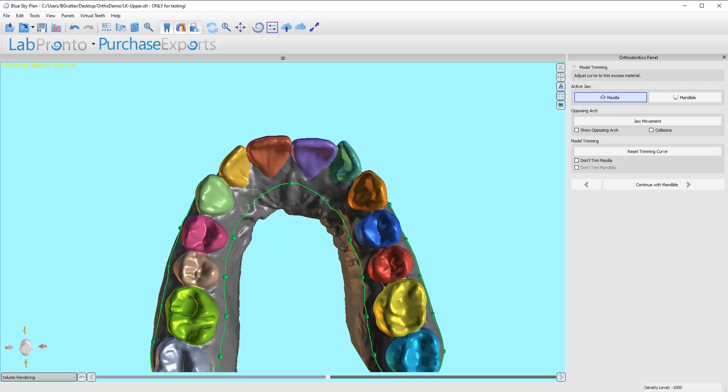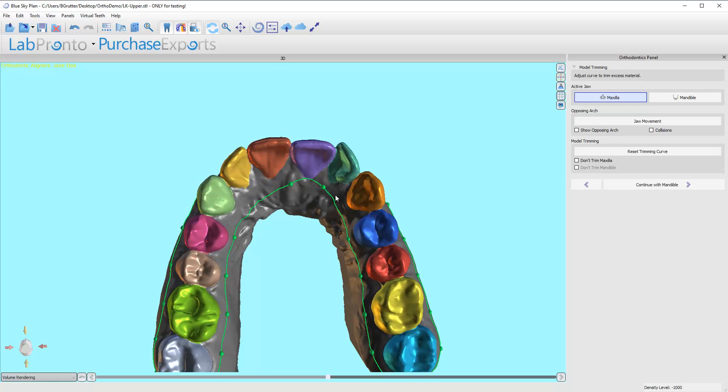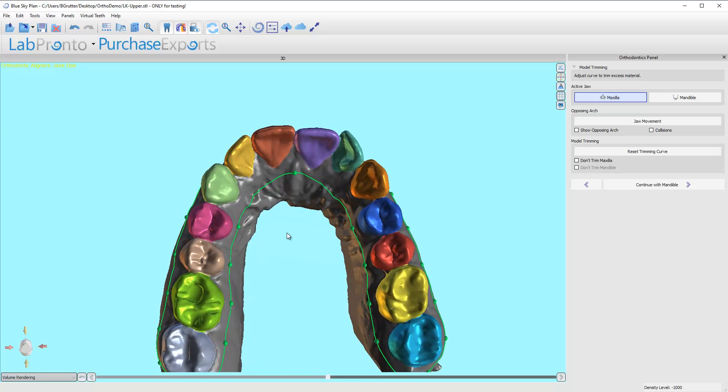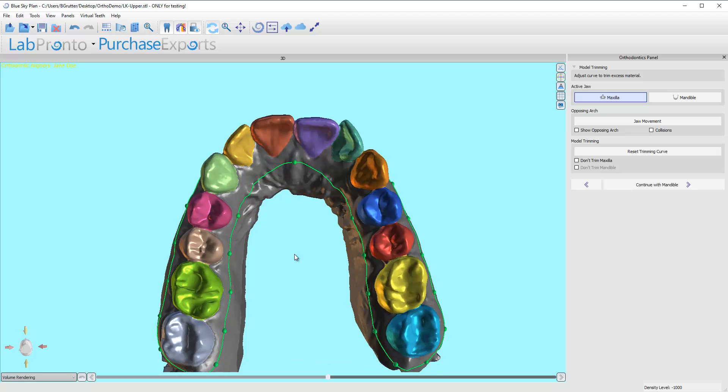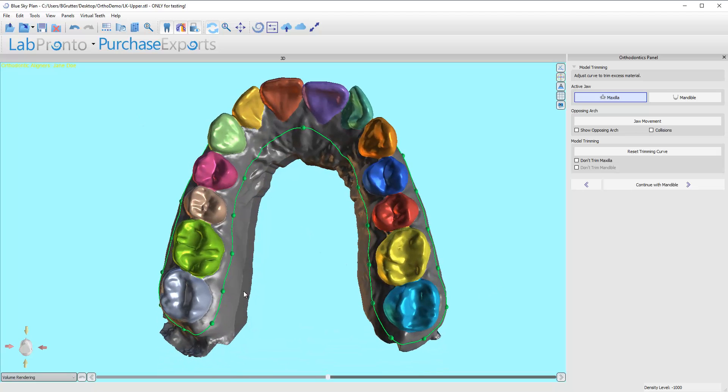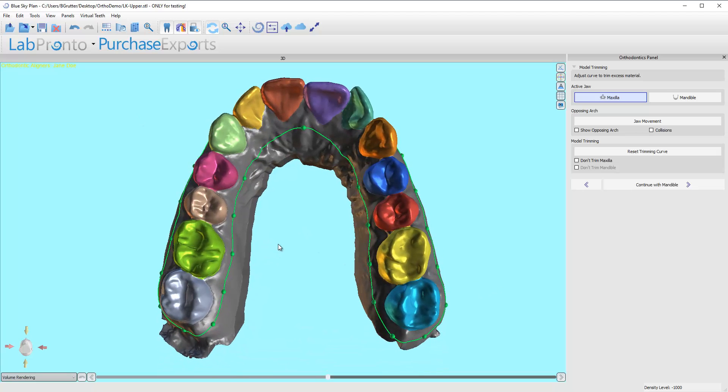If I hold the shift button and draw a mark there, it allows me to add a node. As I have more nodes, it becomes more flat — that's what we call bridging in the 3D printing world, and I don't really want to do that too severely. So this creates a nice curve, which is just going to make it easier for me to print vertically when using my 3D printer.